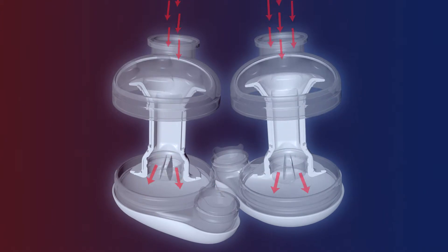Real Heart TAH pumps blood to the lungs from the right side pump and the rest of the body from the left side pump. This is done simultaneously in a synchronized manner.